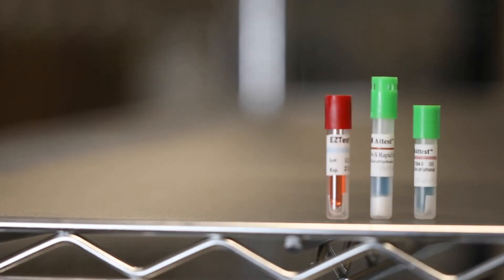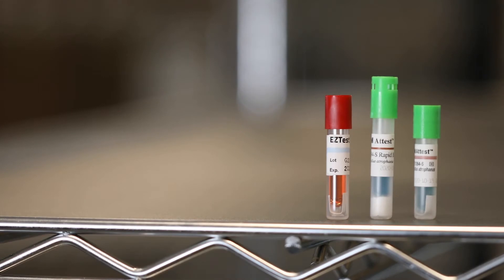Biological indicators provide greater confidence in the kill cycle, even in the most difficult to sterilize location in the load.